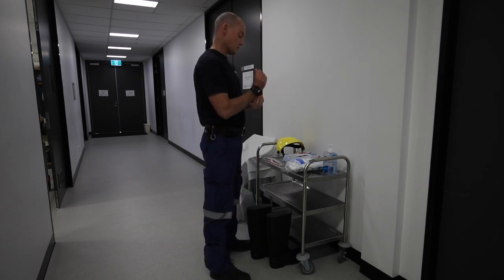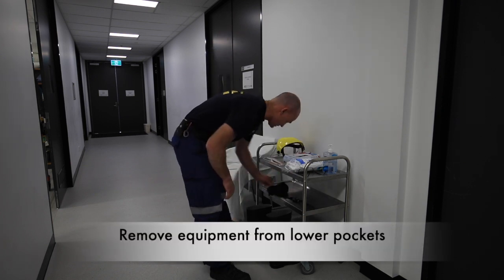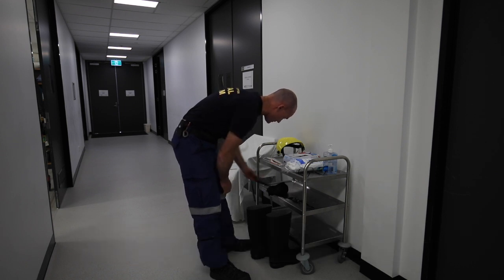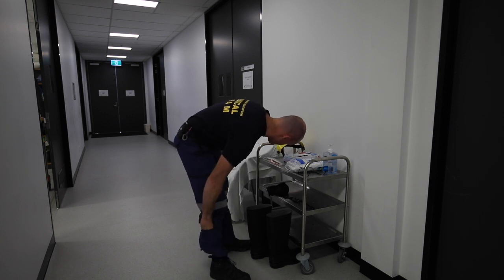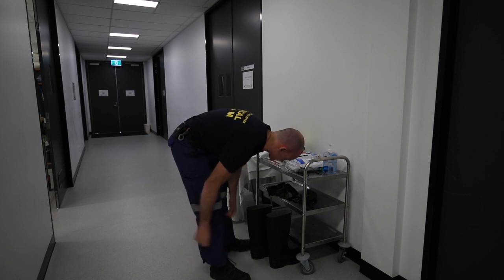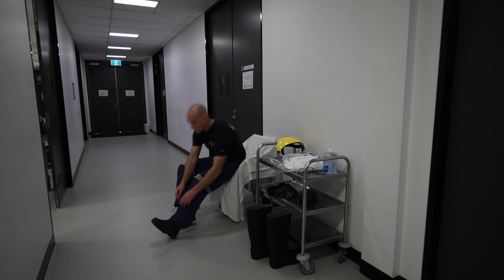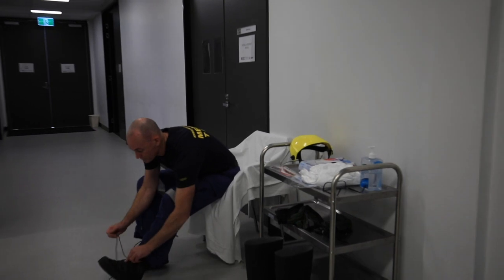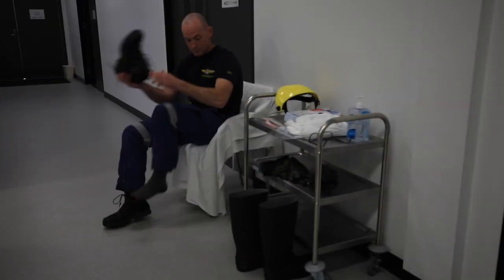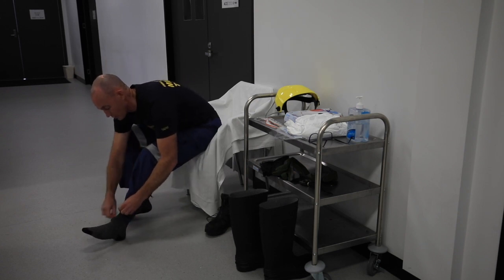You can remove your watch as well. Empty excess stuff out of pockets — the other uniform you put on might have already had this done — but particularly with the thigh pockets and calf pockets, empty excess stuff as it's going to cause issues with your boots. So, boots off and tucking my pants into my socks.